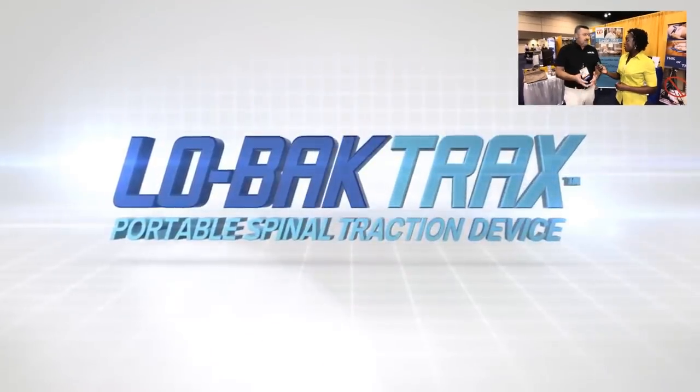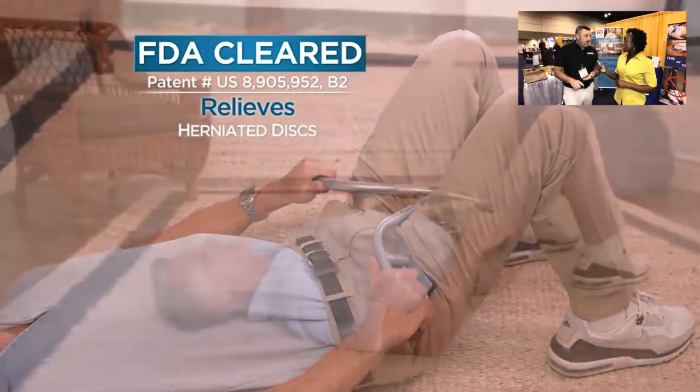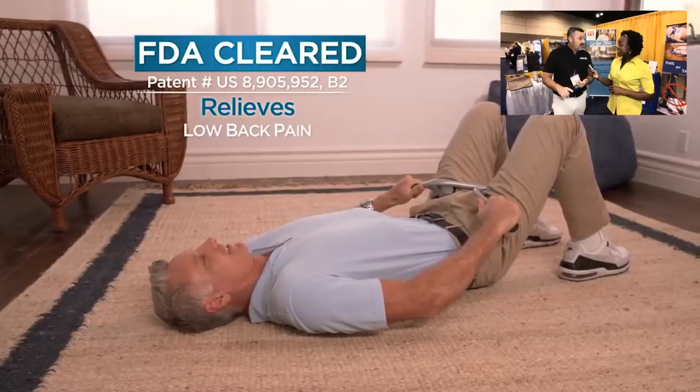So if I'm hearing you correctly, this device doesn't require the patient to be in the clinic — they can be taught how to use it properly and then use it at home? Absolutely. This is a pain relief device that takes pressure off the joints. It's FDA cleared to treat things like herniated discs, spinal degeneration, spinal stenosis, sciatica, and muscle spasm. It can be used at home in conjunction with physical therapy, because while patients still need PT to retrain muscles and address imbalances, they can manage pain relief at home with this device.